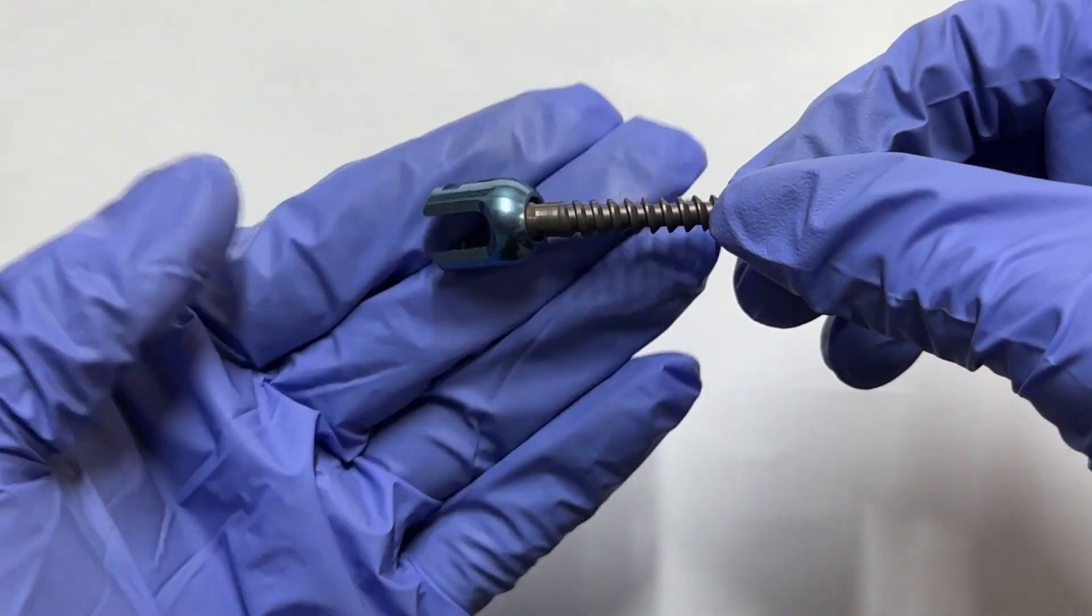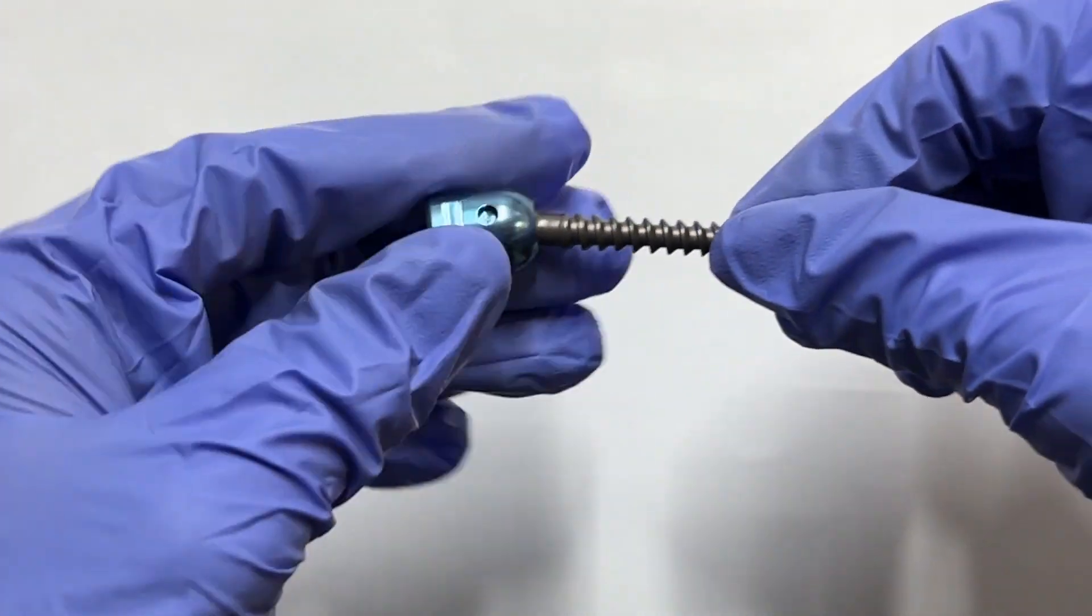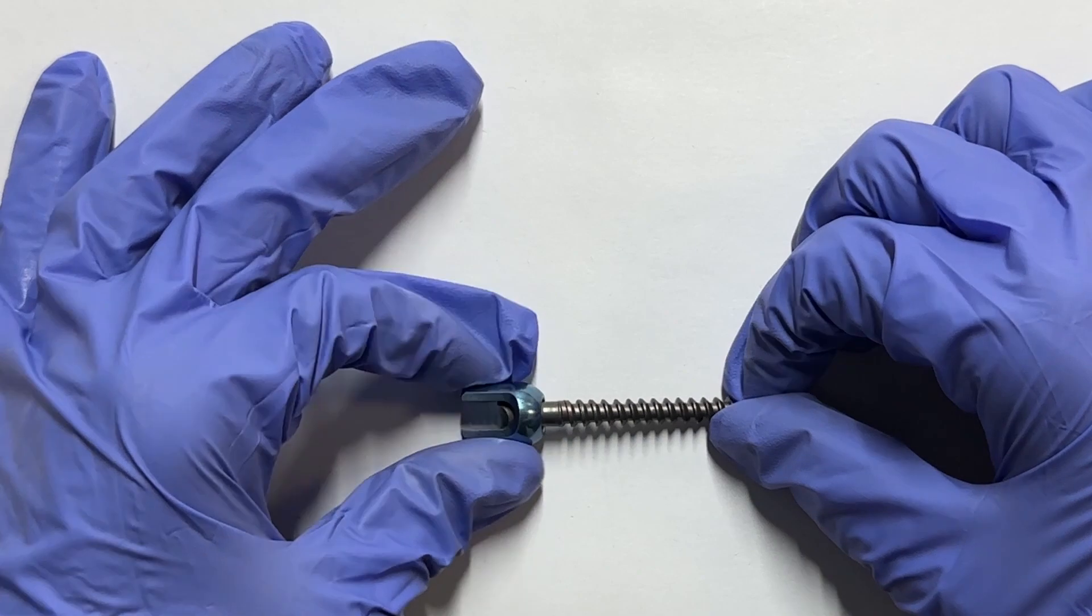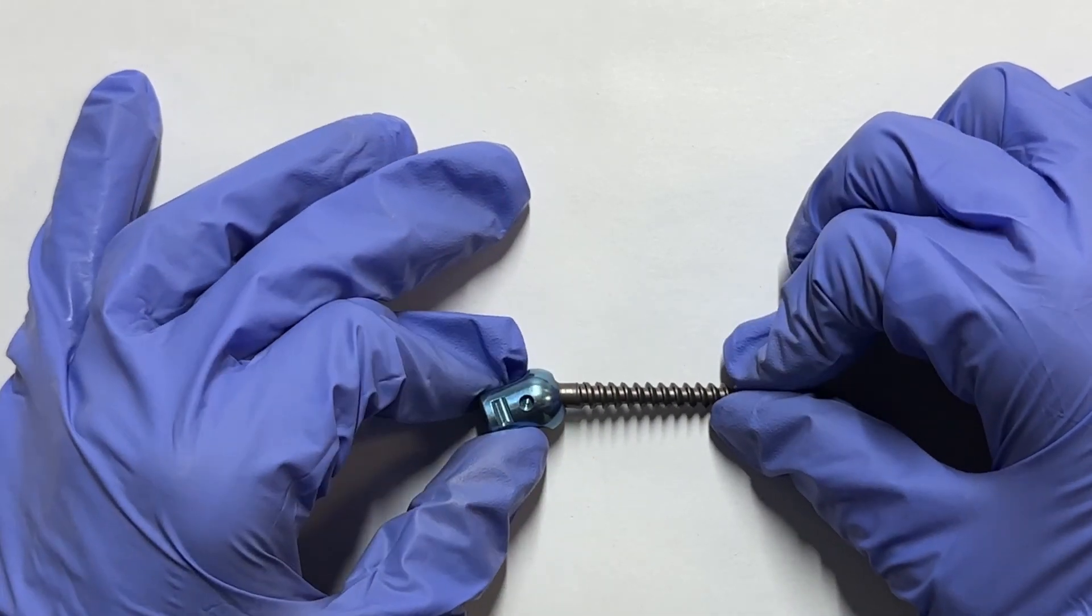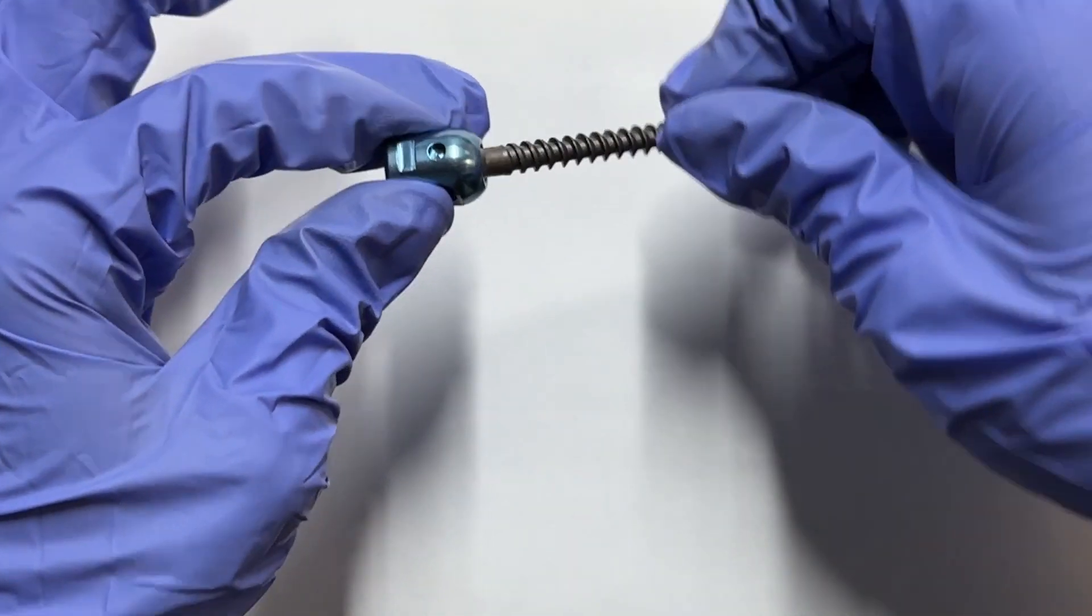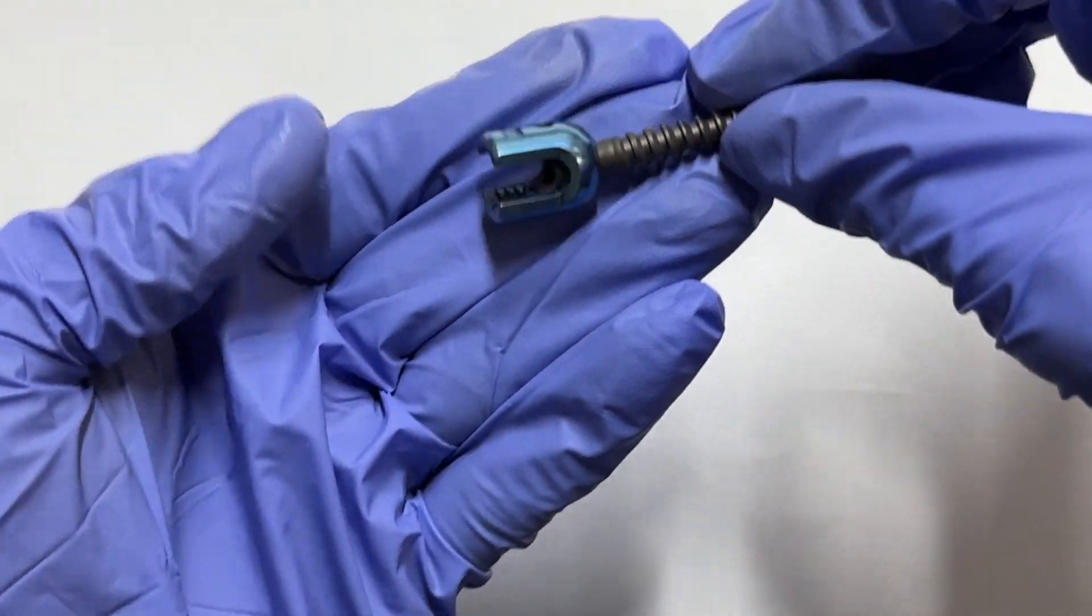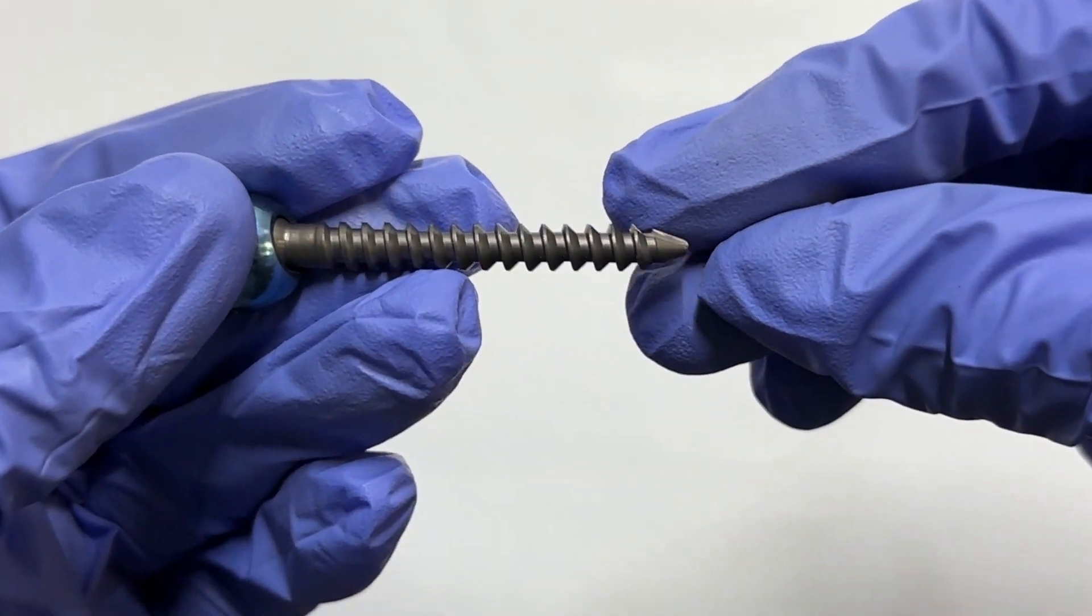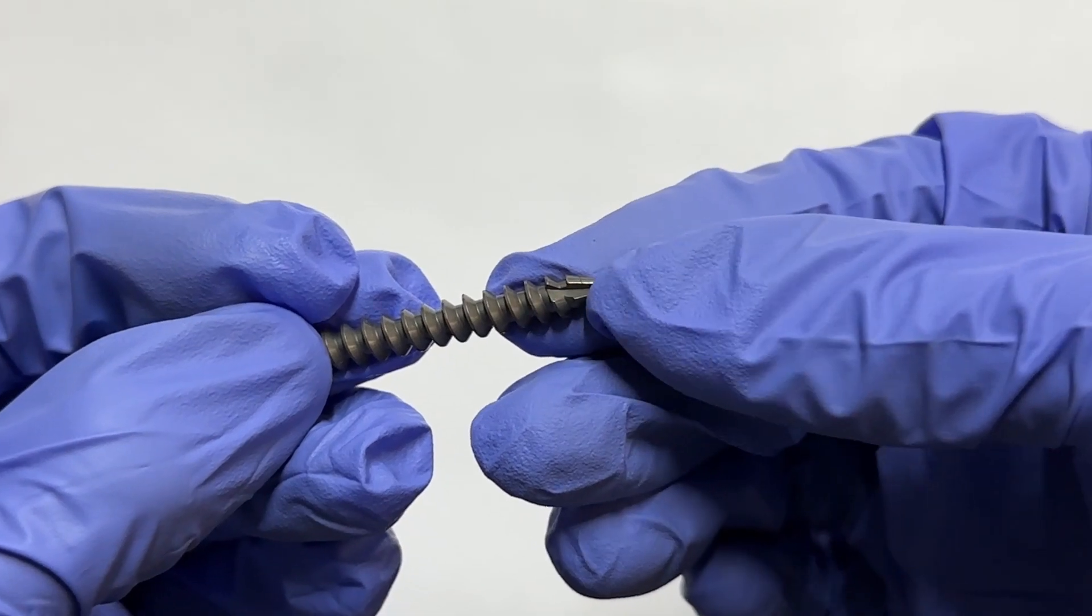Both variants are meticulously crafted from titanium, ensuring strength and biocompatibility. Available in diverse lengths and sizes, these pedicle screws represent the epitome of precision and adaptability, revolutionizing spinal surgery for enhanced patient outcomes.